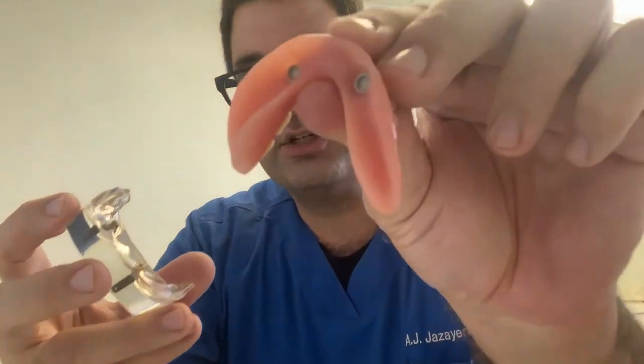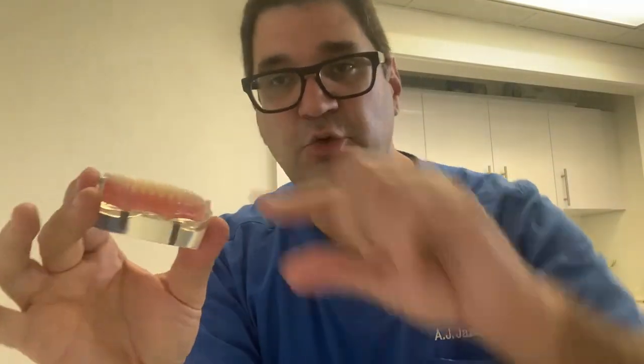There are two options and two routes. One is the fixed permanent option where the teeth stay in your mouth — that's called either all-on-four teeth or full-mouth implants, which you can learn more about in my other videos. Or you can support your dentures with implants. I have a model to exhibit how that works: we placed two implants on this model and the denture has a housing — it's like a lock-and-key model — and the implant can support the denture to stabilize it.